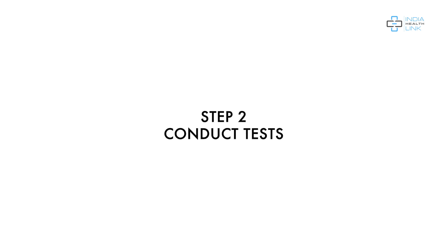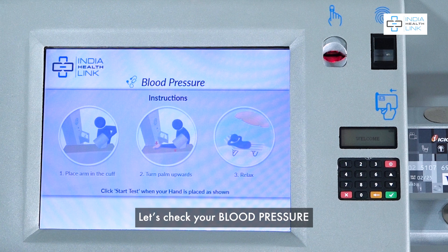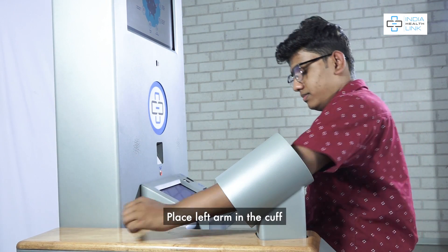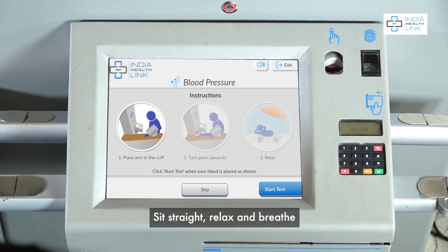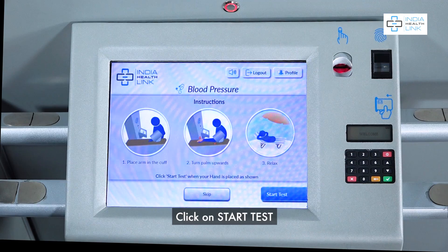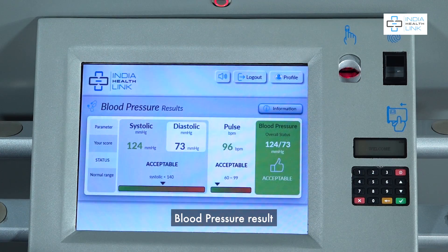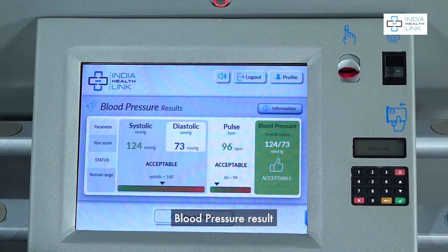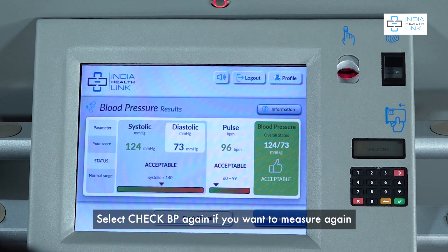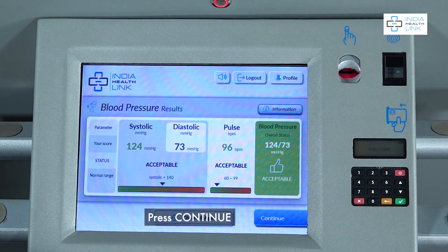Step 2: Conduct Tests. Let's check your blood pressure. Place your left arm in the cuff. Sit straight, relax, and breathe. Click on Start Test for Blood Pressure. View the result. Select Check BP again if you want to measure again. Press Continue.